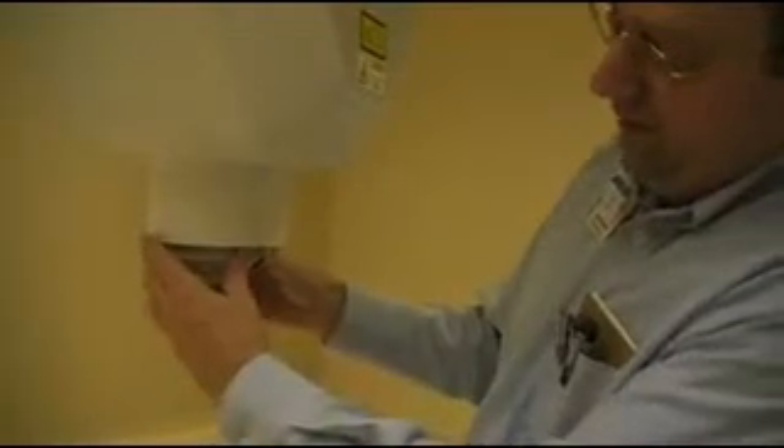And then we have something in case the robot hits the person — we have that as protection.